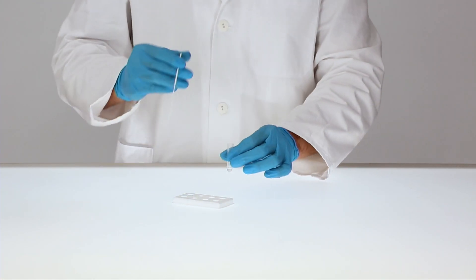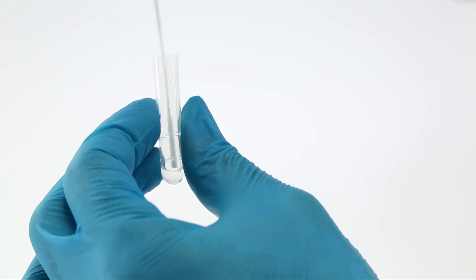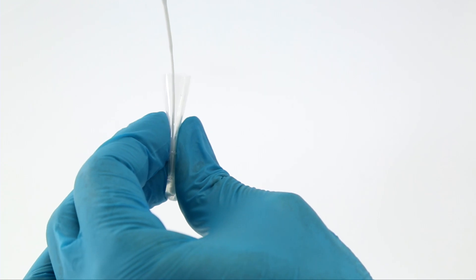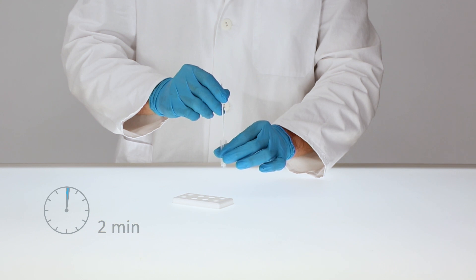Insert the swab with the collected specimen into the tube. Swirl the swab and squeeze it by compressing the swab and extraction tube 10 to 15 times. Then let the solution stand for two minutes.